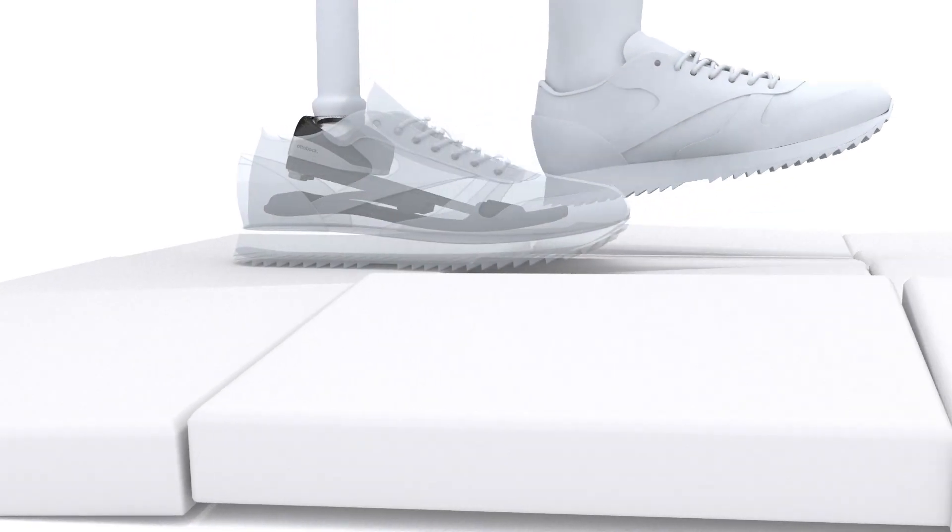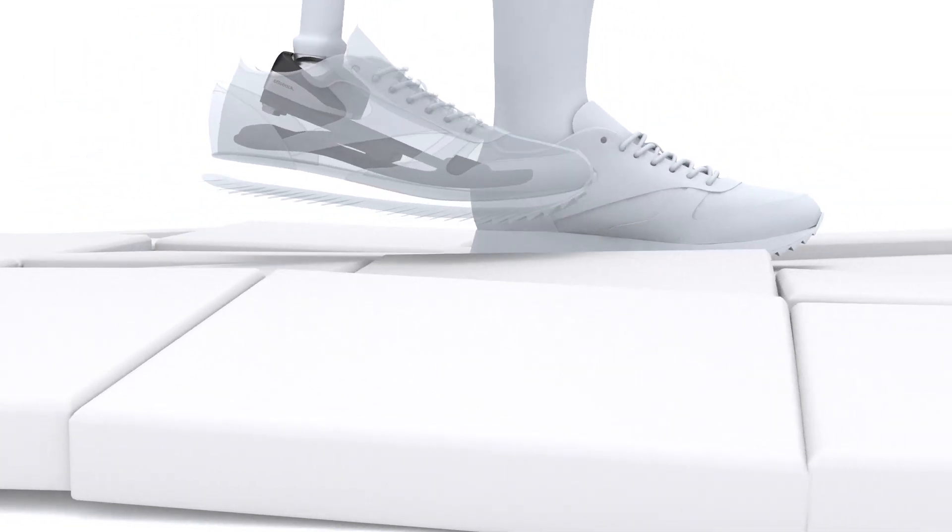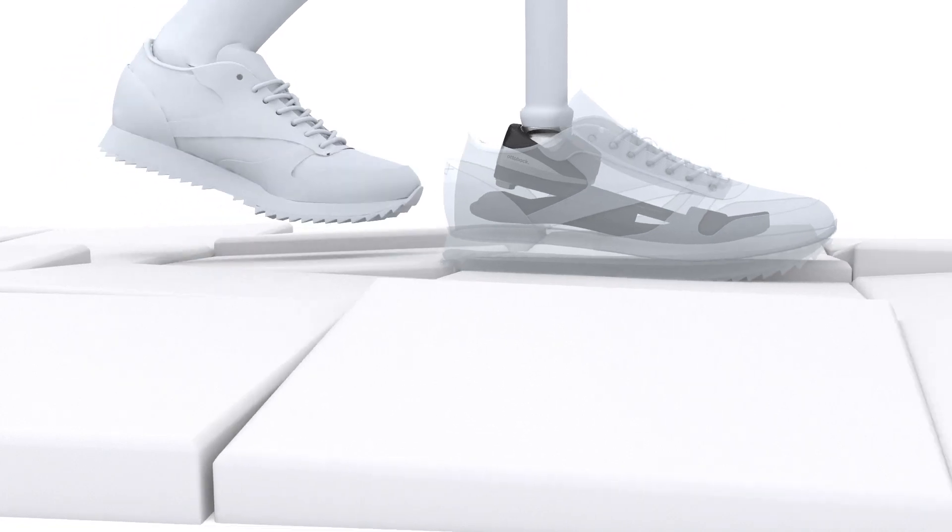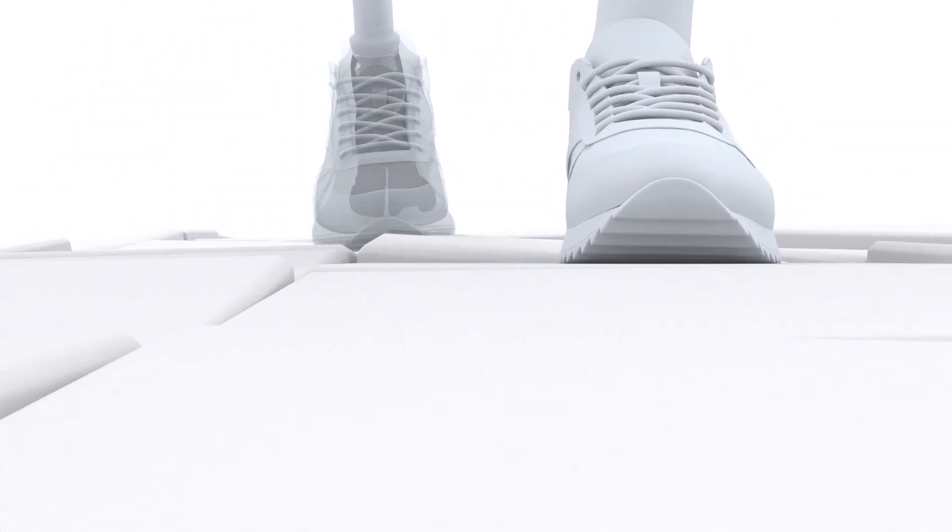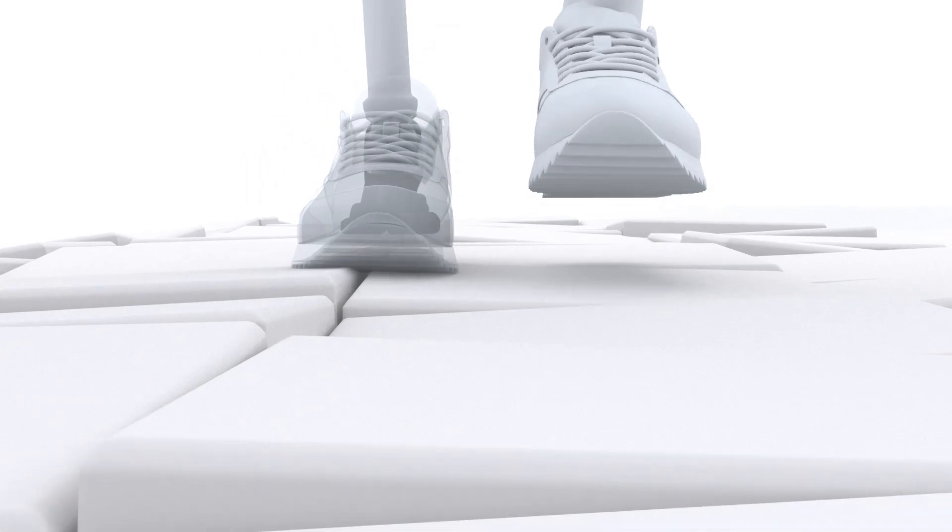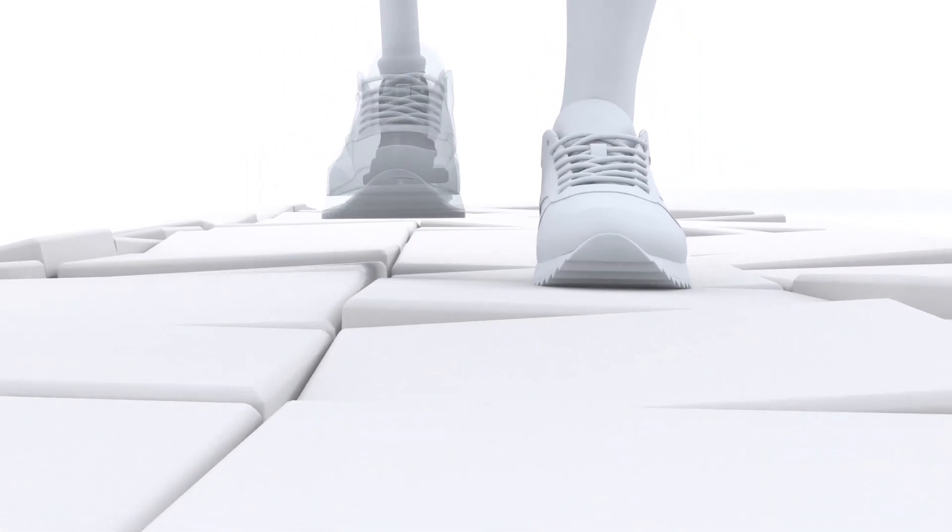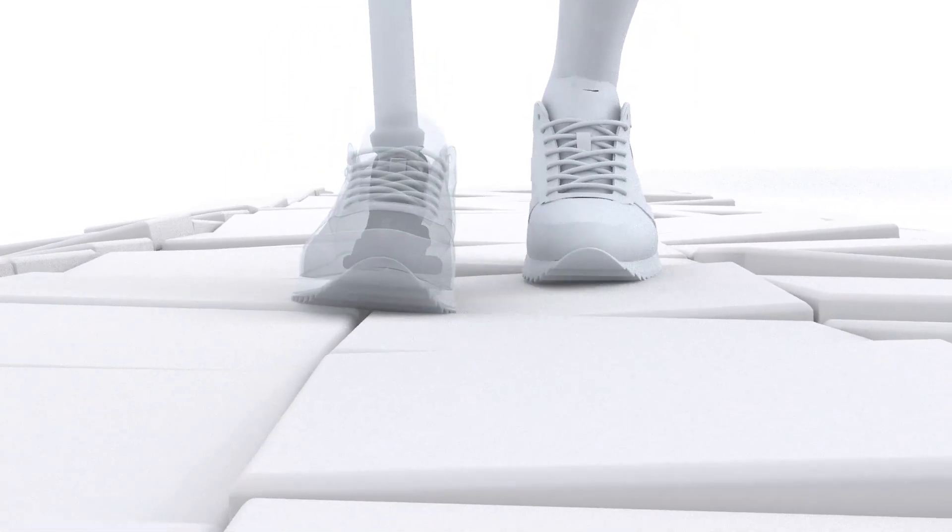The Triton SideFlex offers big advantages when performing various everyday activities such as walking on uneven ground and side slopes, when turning or walking through curves, when standing with a wide stance or when stepping to the side.